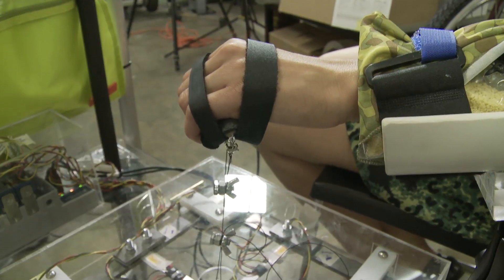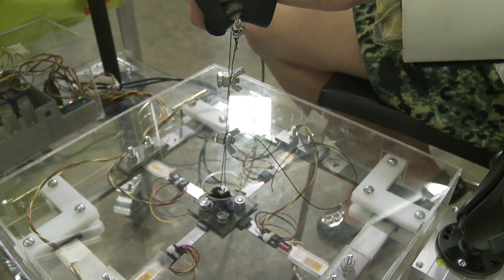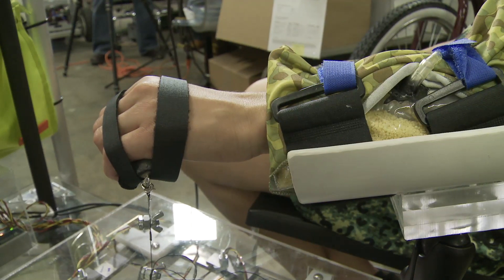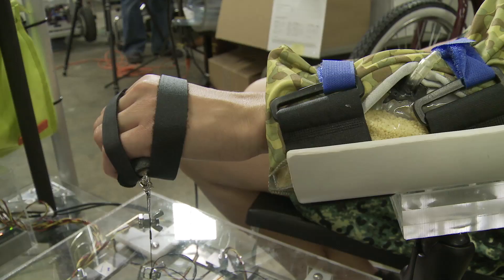The physician can save the output and use it to track the patient's progress. Our project is actually going to be in the clinic starting this summer. Not only are we solving a real-world problem, our project will actually have an effect. We've already been into the clinic and put our device on children. Our mentor Dr. Kagola is thrilled — if we could give her the device right now, with just a couple of adjustments to make, she would take it.